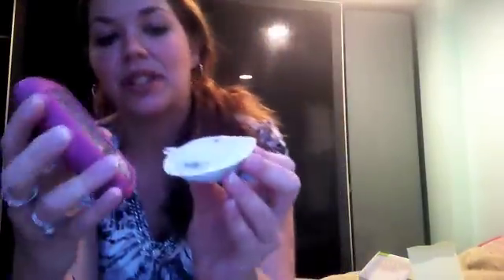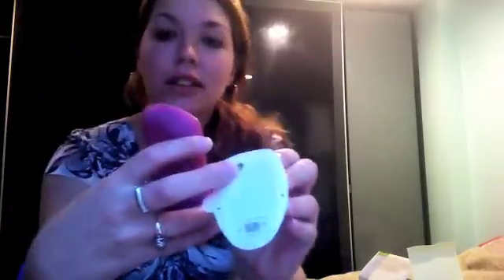Now you hear a little clicking — it means that the machine is pulling the insulin from here and pulling it up to here. After all that's done, you'll hear a little beep. A beep means it's ready. So it says prepare infusion site and remove the backing. Pretty much I just have to put this on.